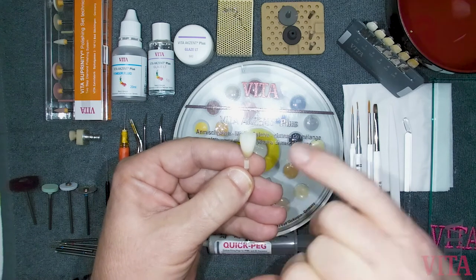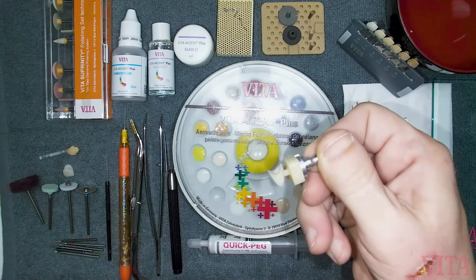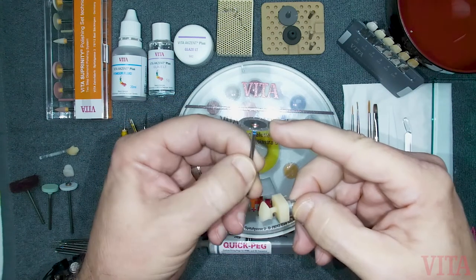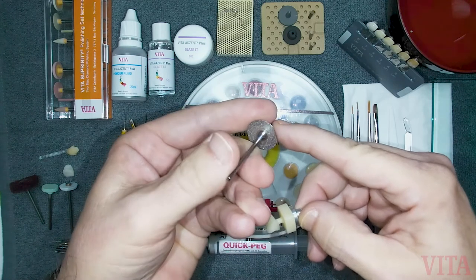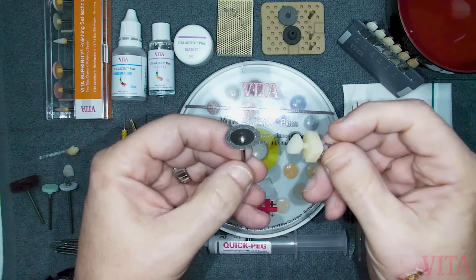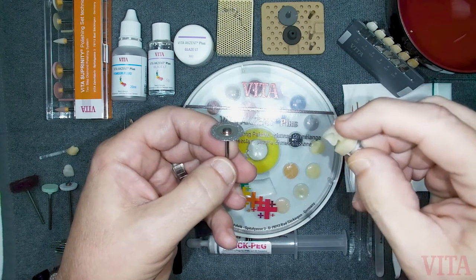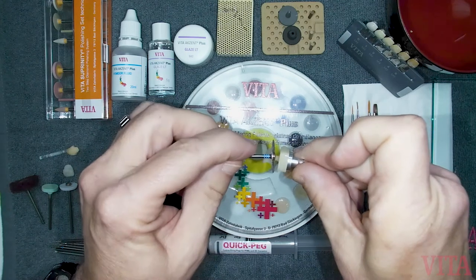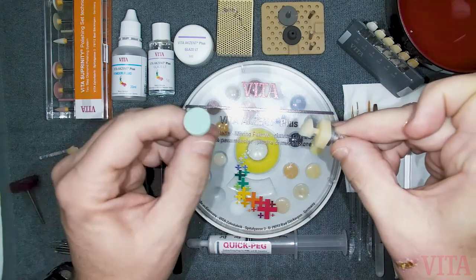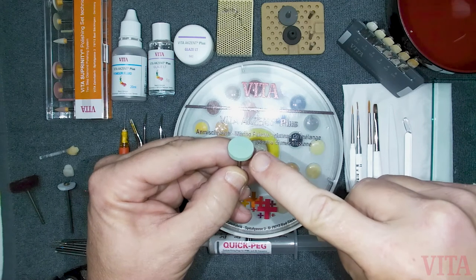If you are digital dental, you are left with a restoration on a sprue. To remove the sprue, use a diamond disc — preferably a double-sided diamond disc — which allows you to cut through gradually at a nice pace without overheating. On some materials, it's best to use a little bit of water on your finger and drop it onto the sprue as you cut, which helps reduce heat. If you're going to grind off your sprue, you need a diamond-impregnated grinding wheel suitable for all-ceramics or the specific material you're using.